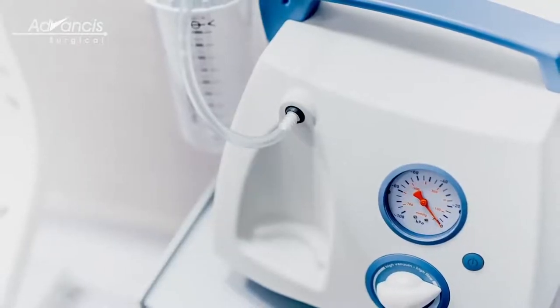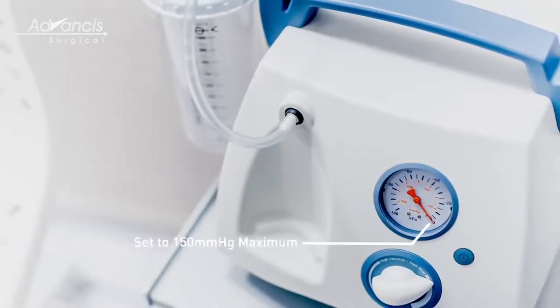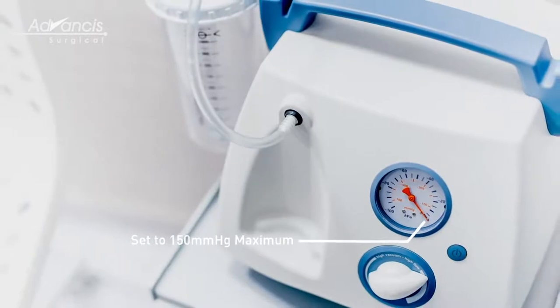Connect the free end to the suction source and set the suction to 150 millimeters of mercury maximum to prevent cell damage when suctioning shed blood.